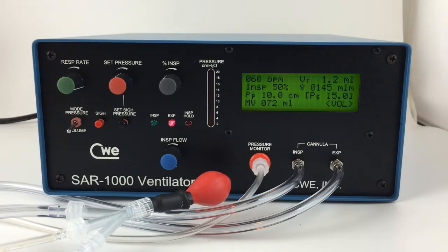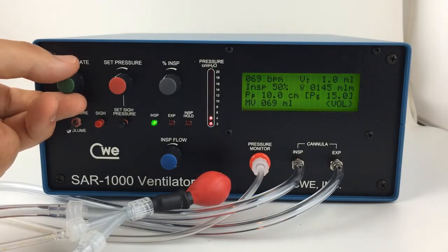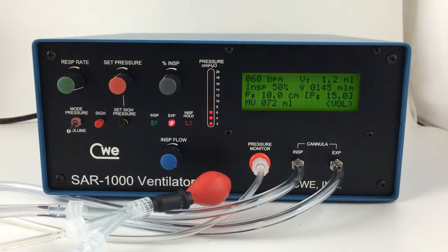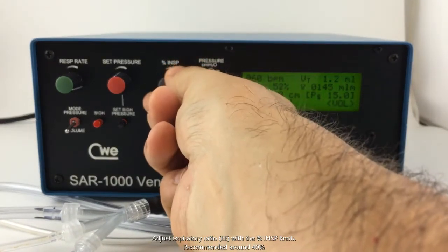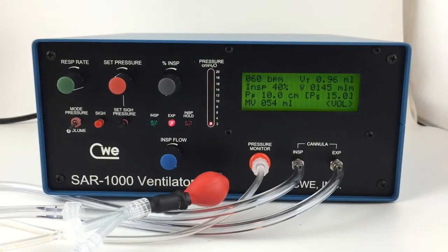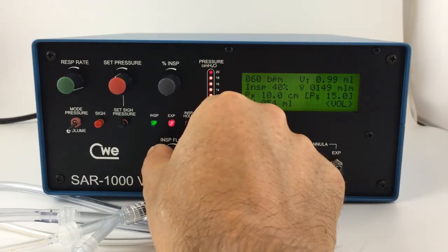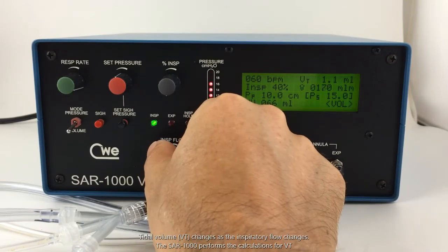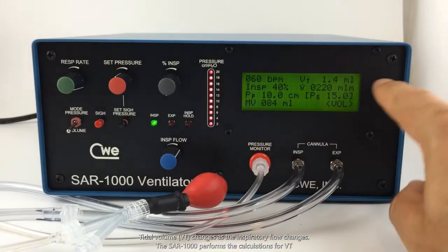To set up the SAR for volume mode, begin by adjusting the respiration rate. Next, you'll want to adjust the percent of inspiration. Now adjust the inspiratory flow knob. Note that as I change the inspiratory flow, the tidal volume changes.